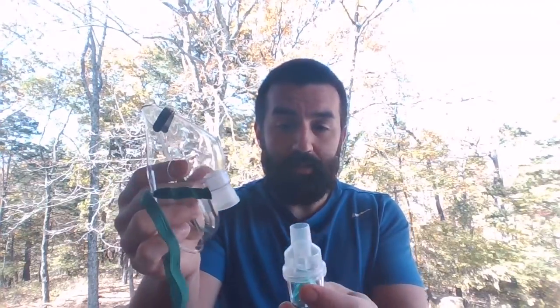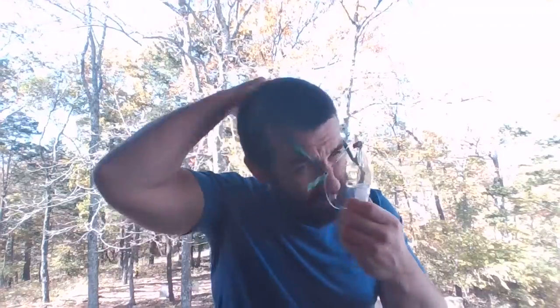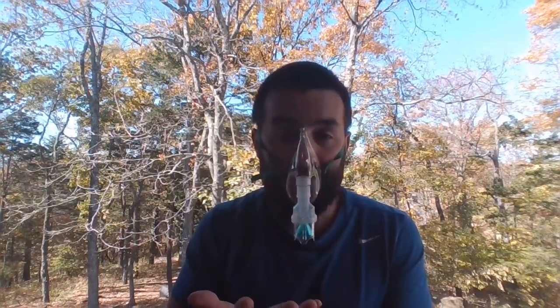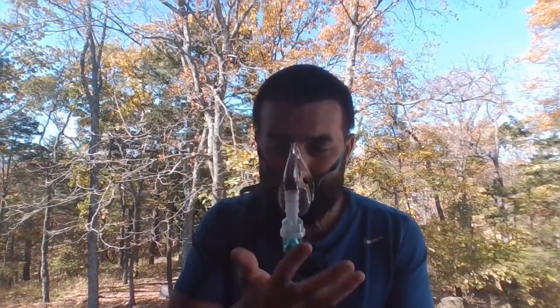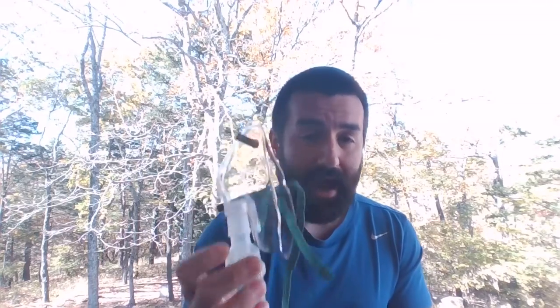So these are set up where this is going to hook straight on like this, okay? And you have this on your patient, and then same deal, we're just having them take nice, easy, normal breaths in and out through the mouth, okay? Preferably the mouth, less chance for depositing in your nares and things like that. And we're going to run on the same liter flow. This is not meant to be high flow. We're just trying to get the first part of that patient's breath they're taking in loaded up with a medicated aerosol. We're trying to target lower airways generally, so it doesn't have to be a high flow or anything.